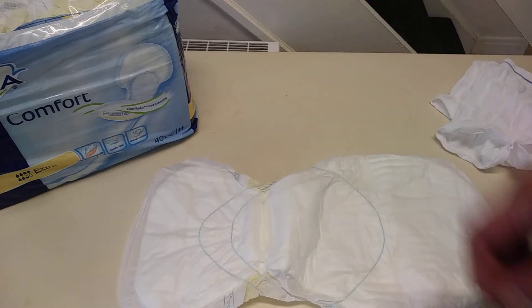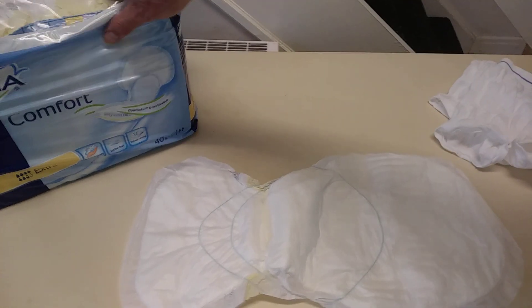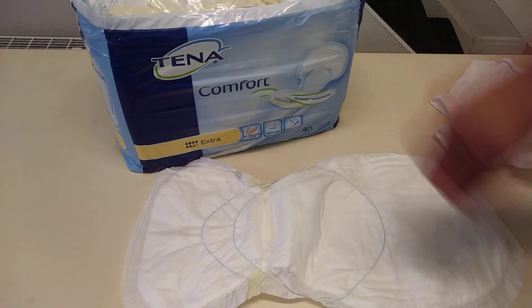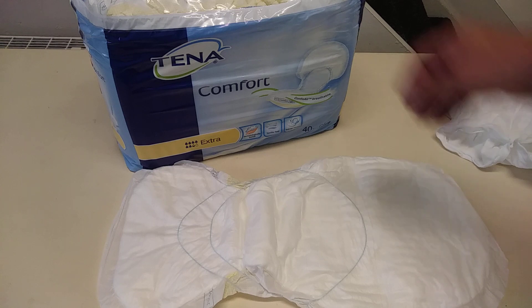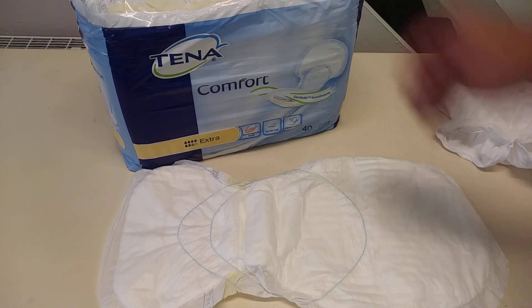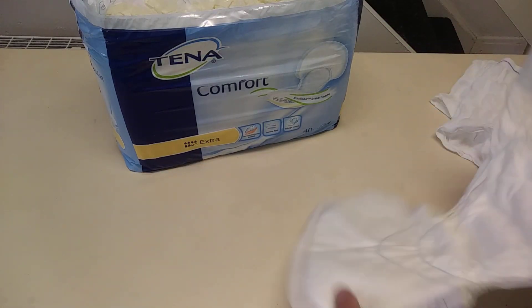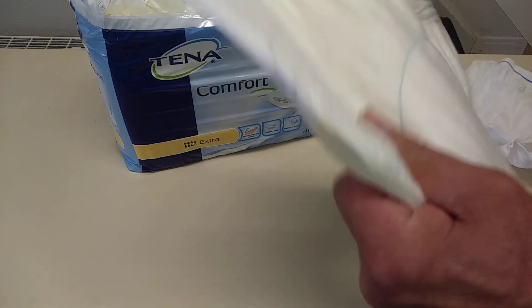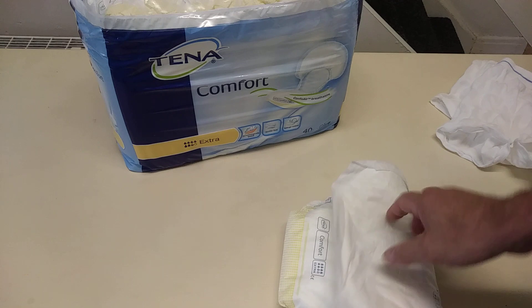It's something that we wear probably later on in life, but now Tena have got this sorted out so you're not going around feeling embarrassed or worrying about unnecessary leakage. These are an excellent product. The NHS use Tena — that's their main thing. Basically, to be used once and thrown away. Really good product, really strong.